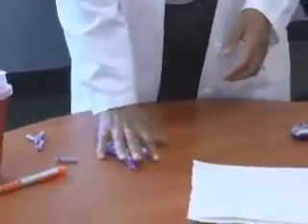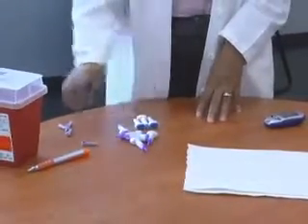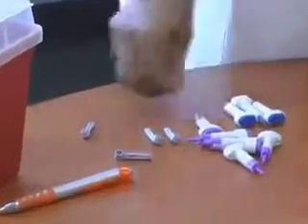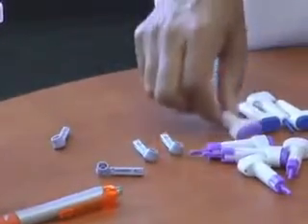I'm going to go ahead and take these and move them out of the picture — I just wanted to make sure you knew what type of lancet devices to avoid. You want to use the type of lancet devices that look similar to this, where the whole lancet device is completely disposable. Or if you want to just use lancets, you can and dispose of them right after you use them. I'll show you how to use these in a minute.